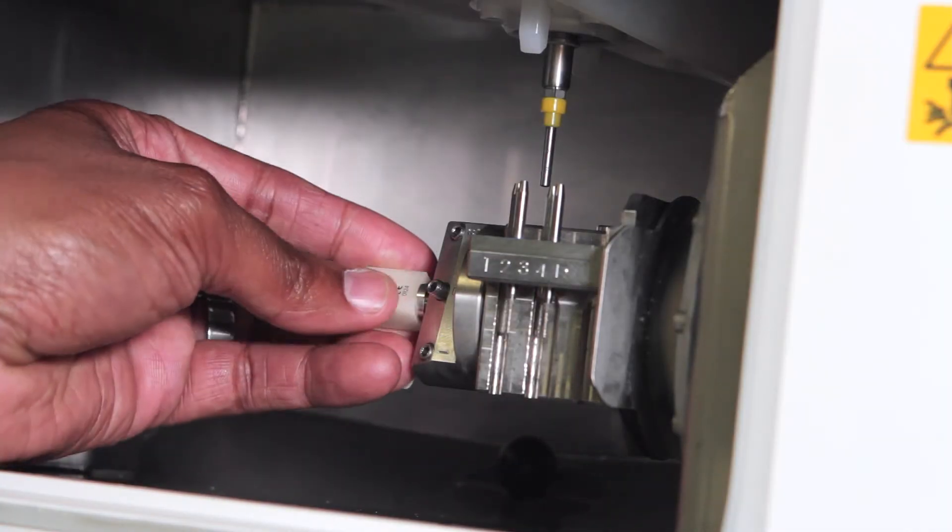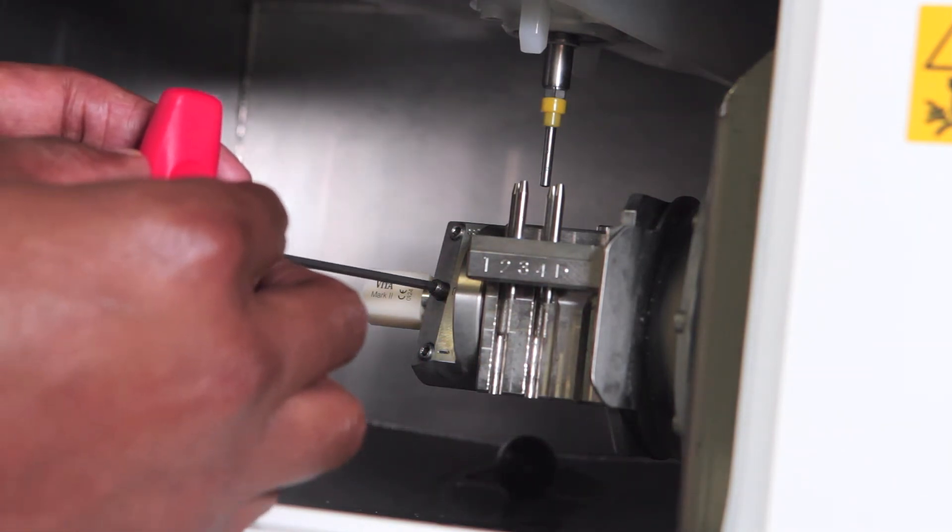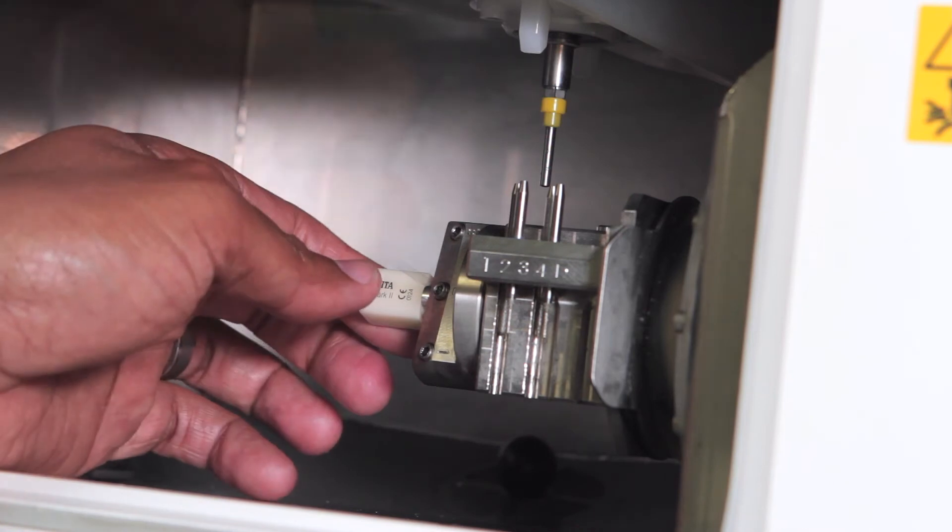Insert the pin type material into any of the three slots until it is flush against the mounting part, then tighten the mounting screw, checking that the pin does not move.